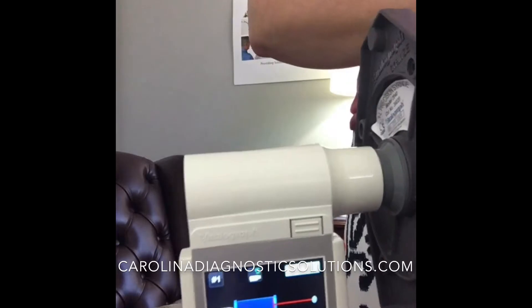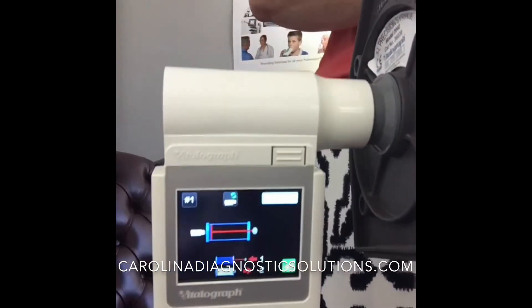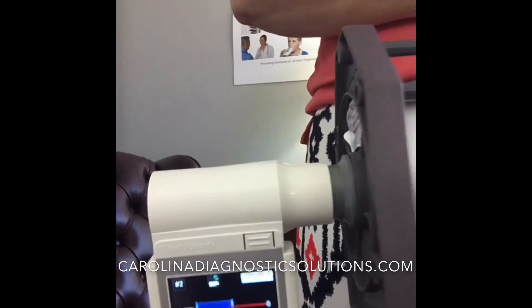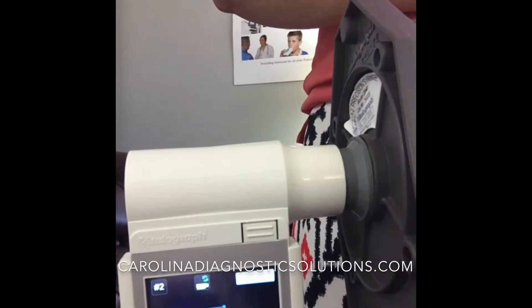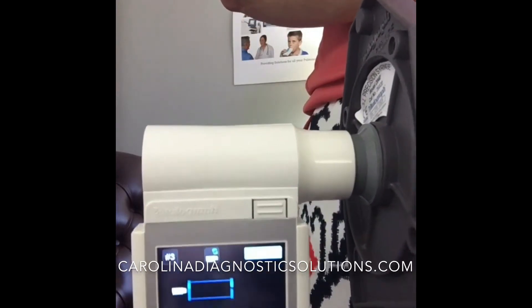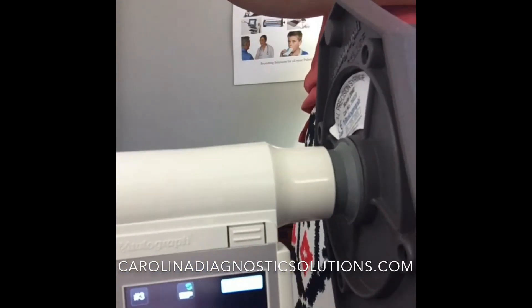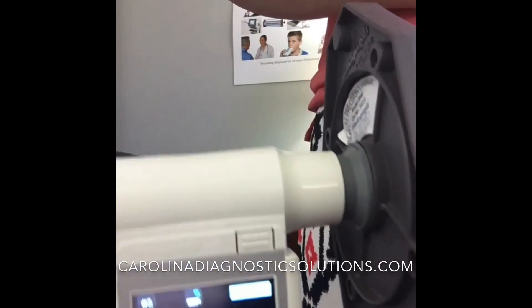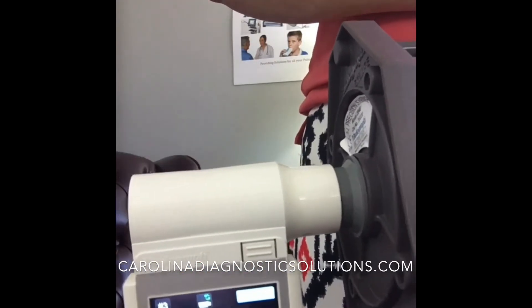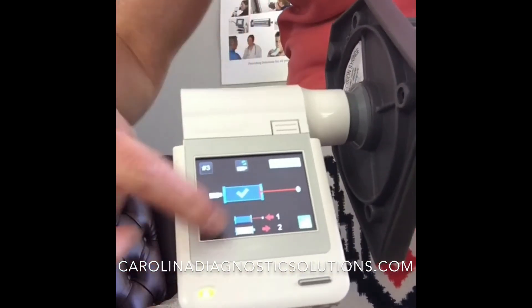You will simply just push that in for a volume check. It's going to come back and say okay. Now let's check it again. And last but not least, get our third stroke in. And it says that you are all done and the check is complete.